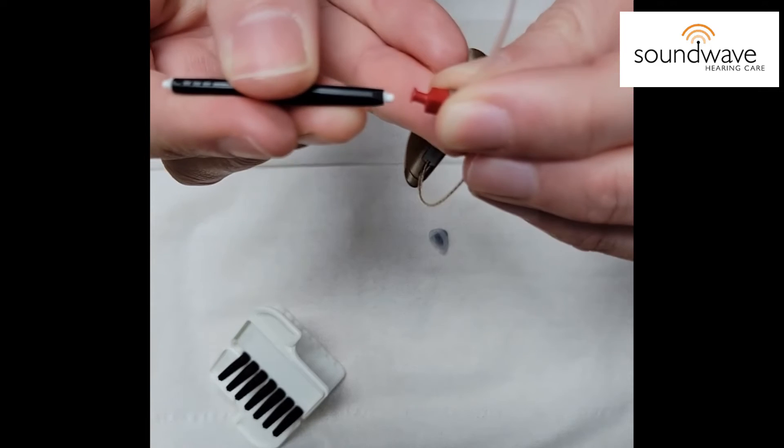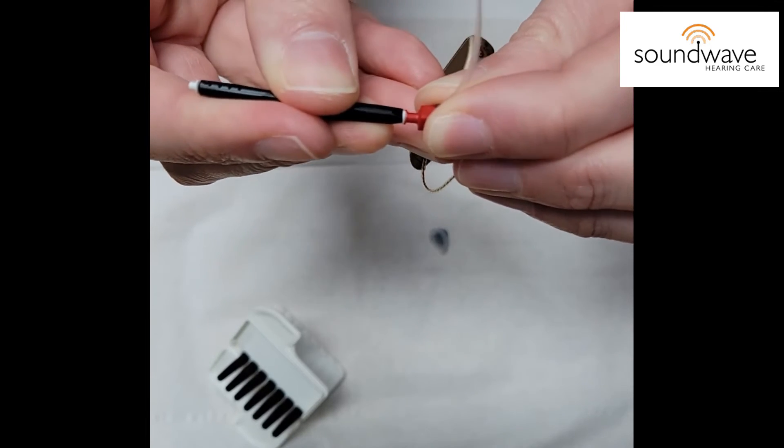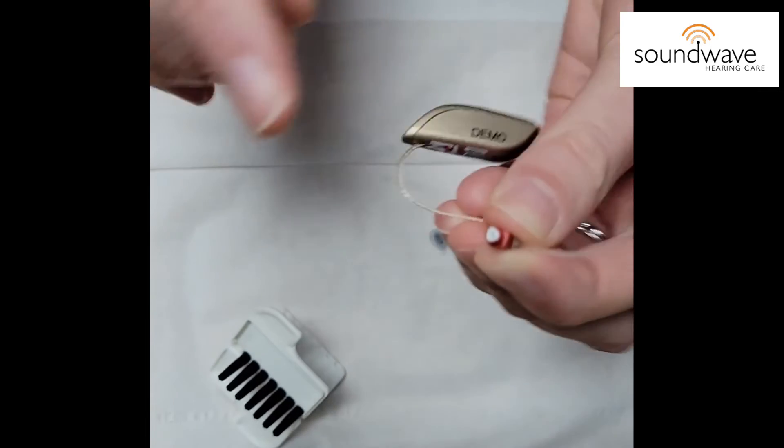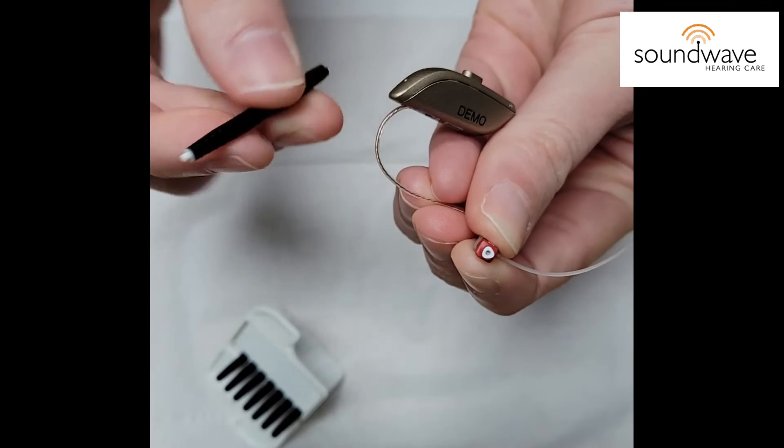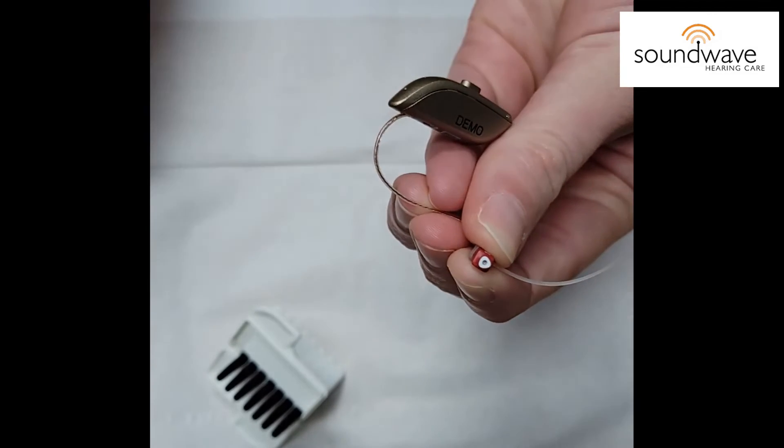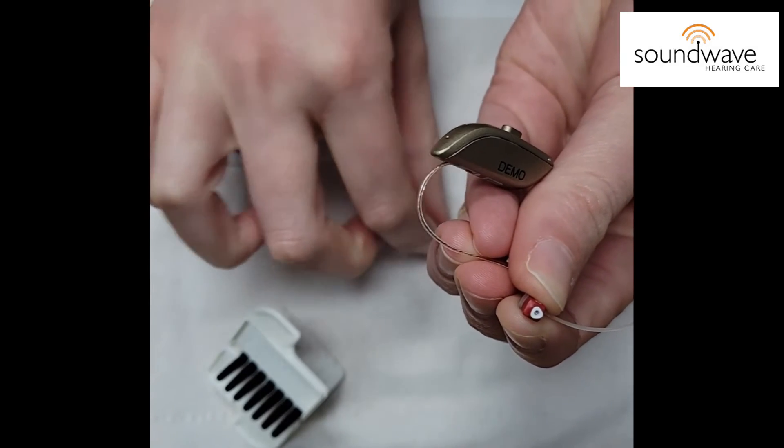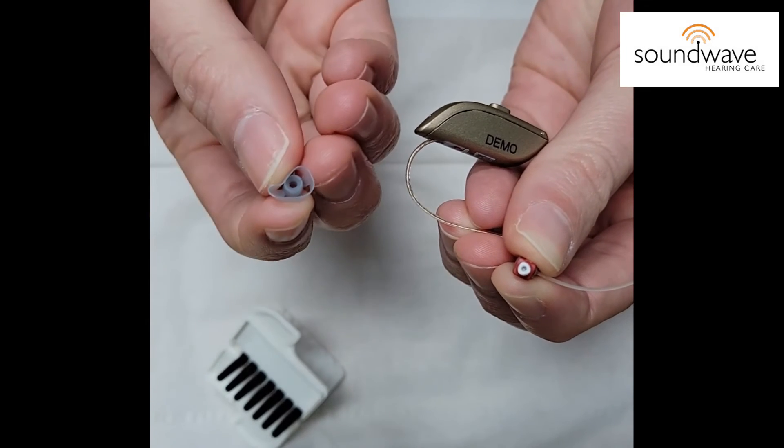You're going to flip it around and push it right back in and now you have replaced the filter. This little stick will just get discarded and then the next step is to put this dome back on.